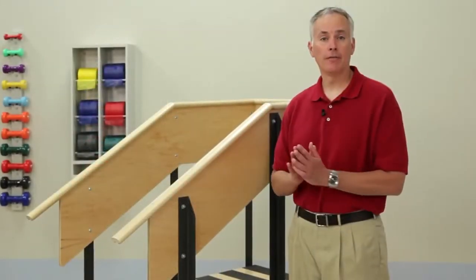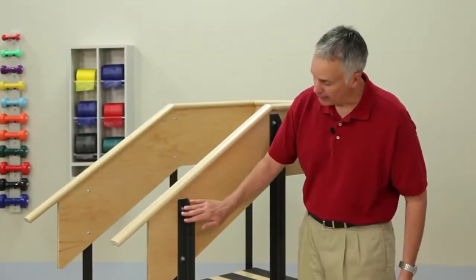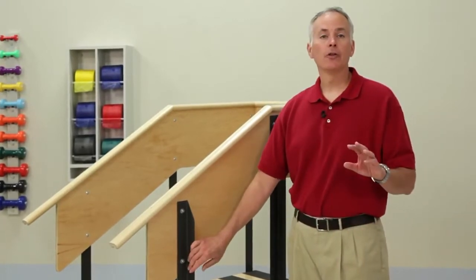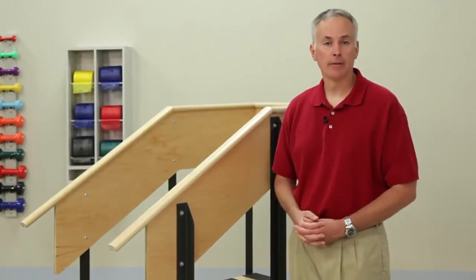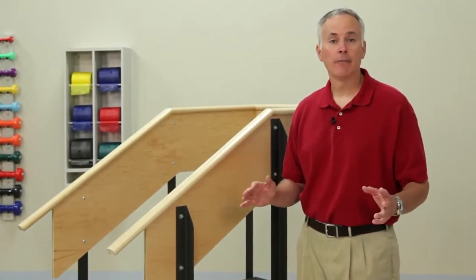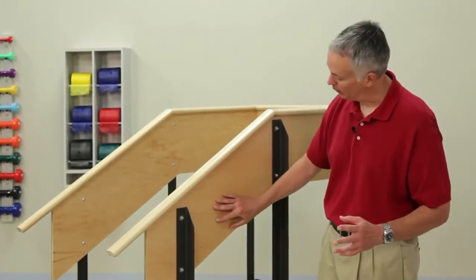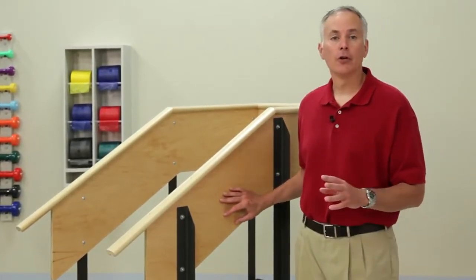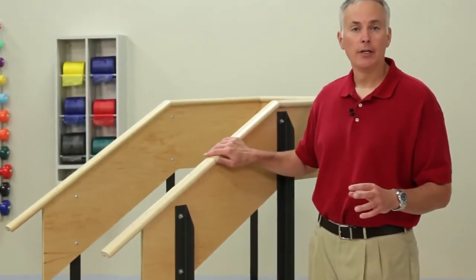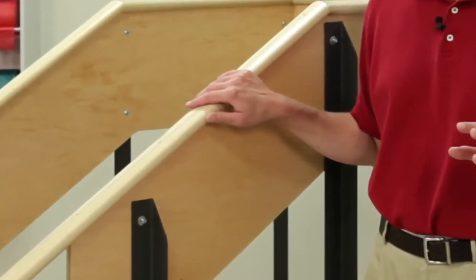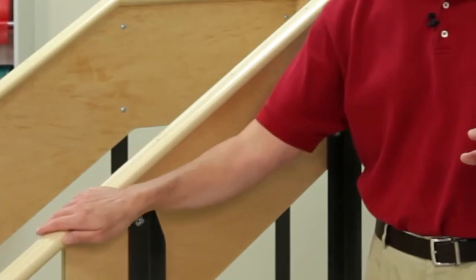Classic staircases are fixed height and use angled steel uprights supported by a sturdy base that gives them a load capacity of up to 500 pounds. Classic staircases have both a wide bottom support under the handrail for an enclosed sense of security and a solid wood handrail, specially contoured for ease of gripping and top-coated with a smooth, ultra-durable finish.